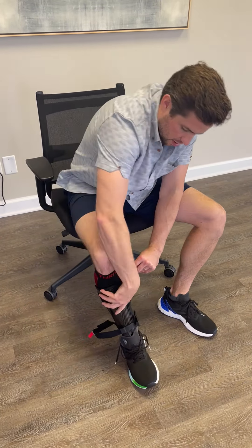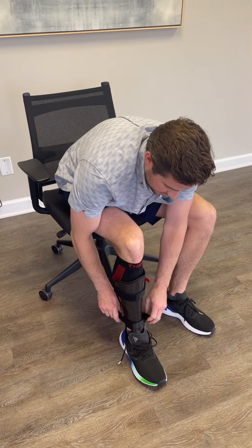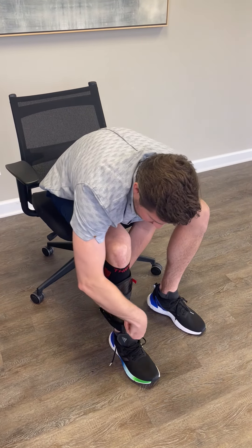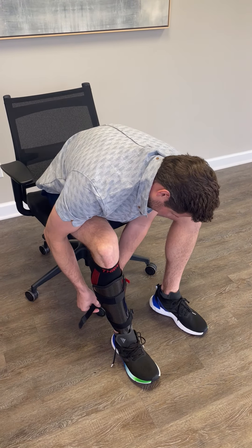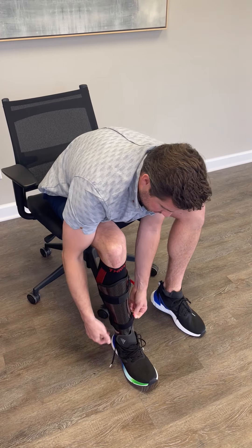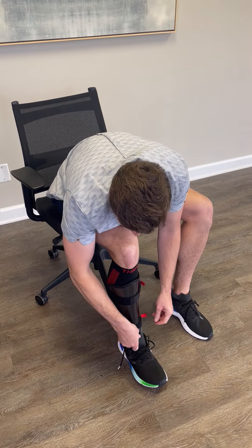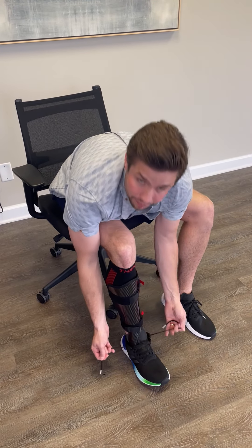So I'm all the way souped up in this situation where I have the calf sleeve, the magnetic straps, and the strap pad. I need to give myself a little bit of extra room here, so I'm just going to make a quick adjustment to my magnetic strap. I'll go ahead and tighten this up. Okay, and I'll tie my shoe and I'm ready to go. Thanks.